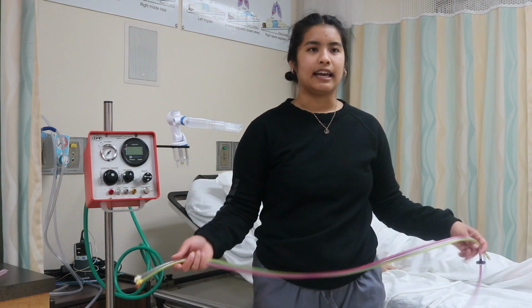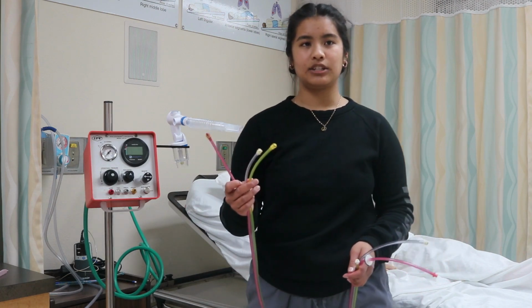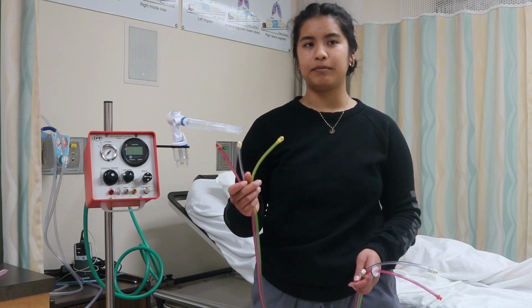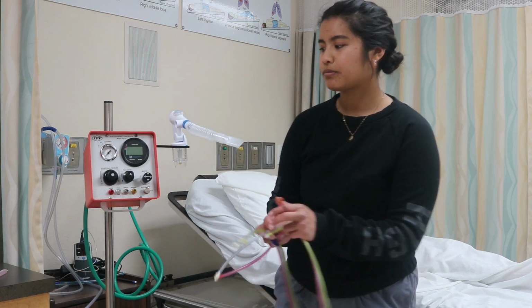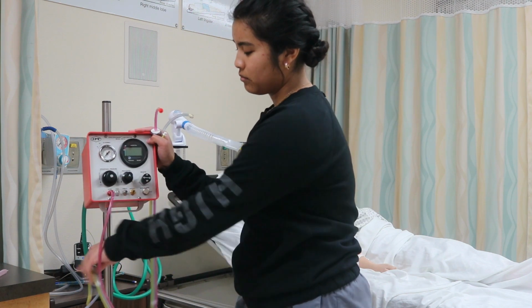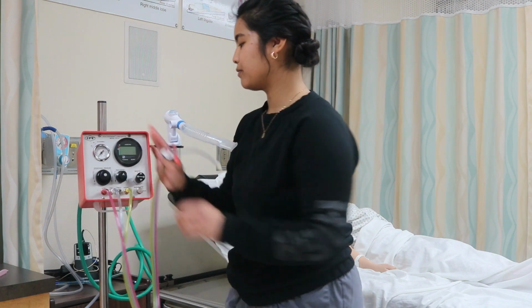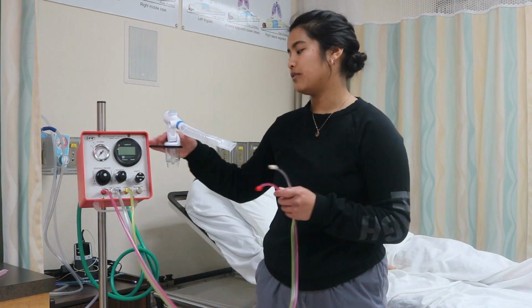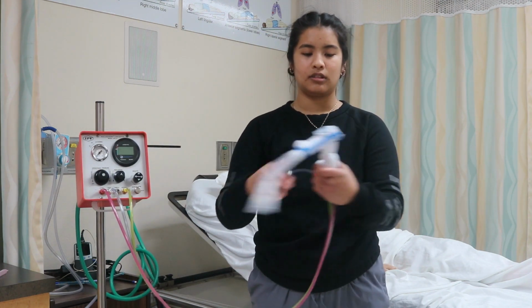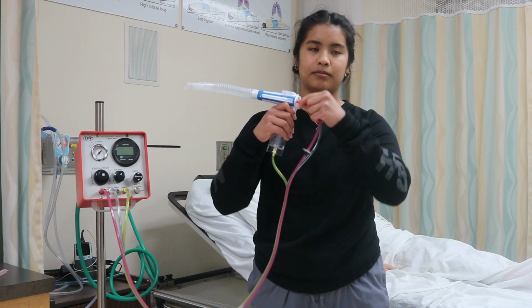This device has a pressurized line that's color-coded. The red is for the gauge. The white is for the phasitron, which is the pulsation piston that allows treatment. And the yellow is for aerosol. So you'll just do the red to red, white to white, and then the yellow to yellow. And then on the opposite side, you'll attach it to your phasitron. On the bottom of the nebulizer cup is where you'll see the yellow, the white to white, and then the red will go in the last slot.